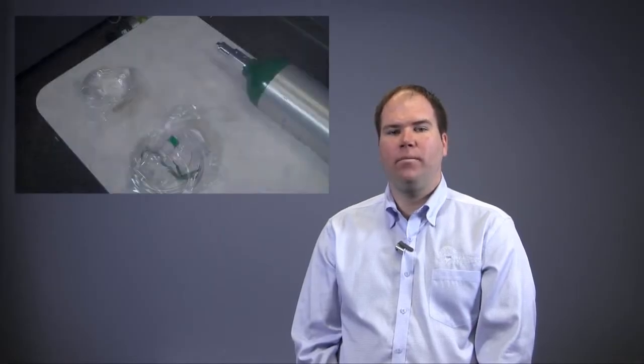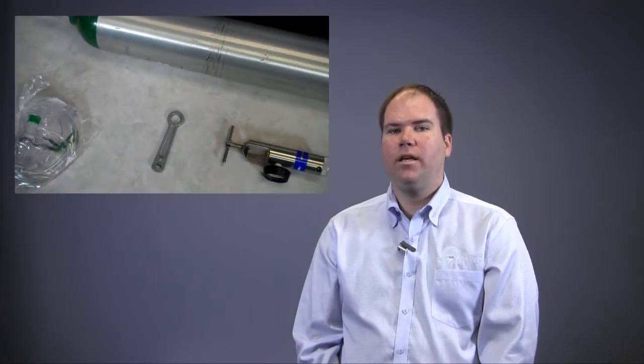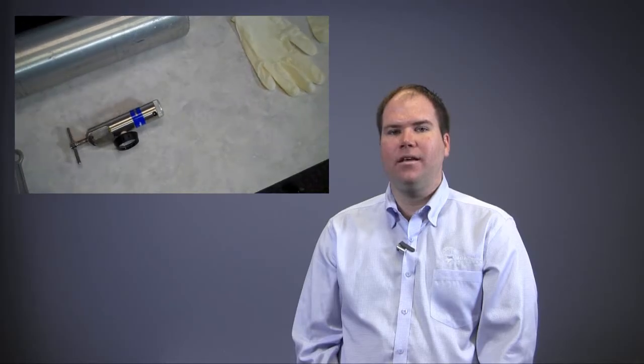I will now take a moment to check my equipment. I check to make certain I have an oxygen tank, regulator, o-ring, tank wrench, non-rebreather mask and a nasal cannula.